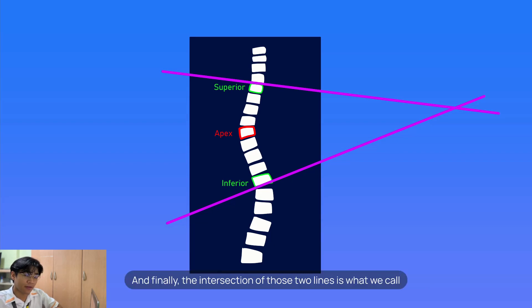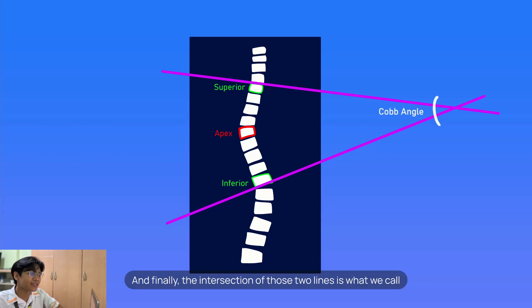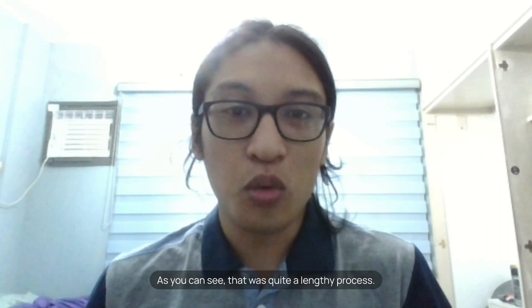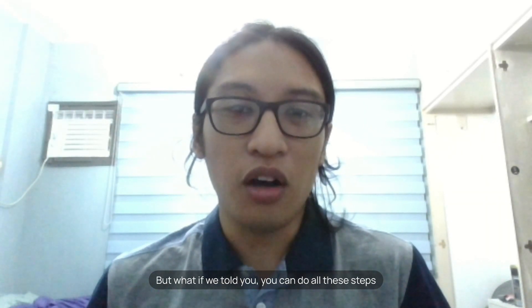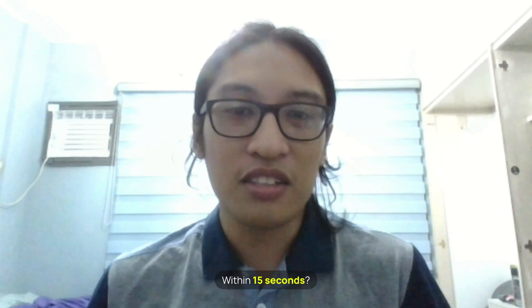Finally, the intersection of those two lines is what we call the Cobb Angle. As you can see, that was quite a lengthy process. But what if we told you you could do all these steps within 15 seconds?